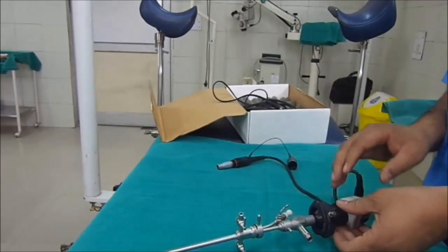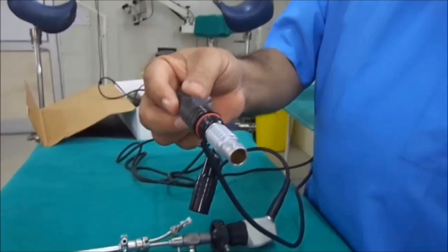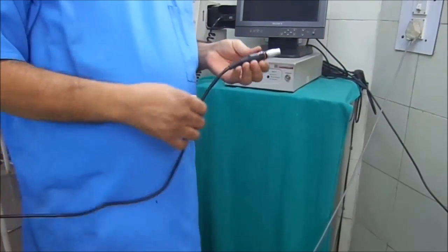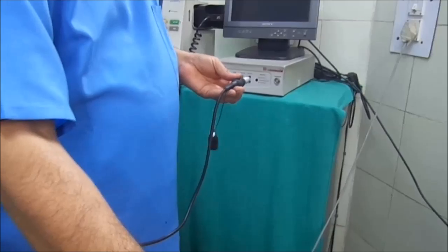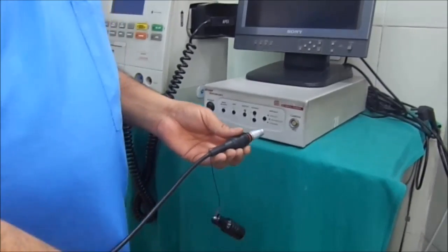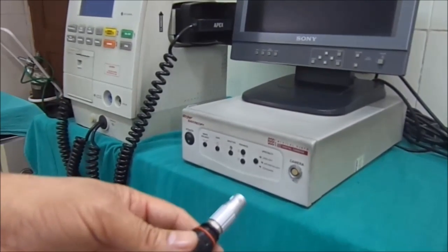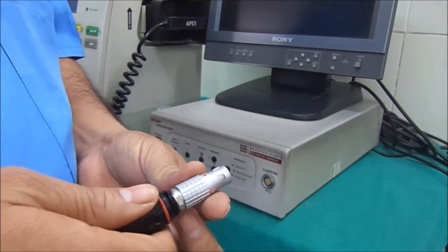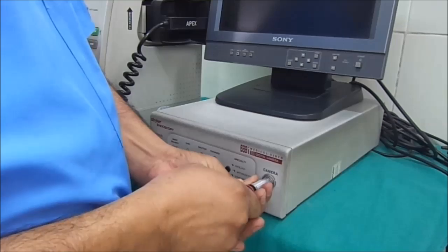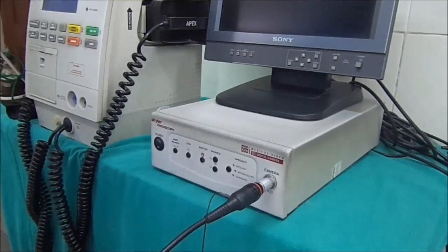The second port of the cable is connected to the CCD camera — the charged coupled device camera. You can see the CCD camera along with the medical grade monitor. We introduce this port into the CCD device; there is a red point at the anterior aspect of this port. Keeping this point anteriorly and simply pressing connects this port into the CCD camera port.